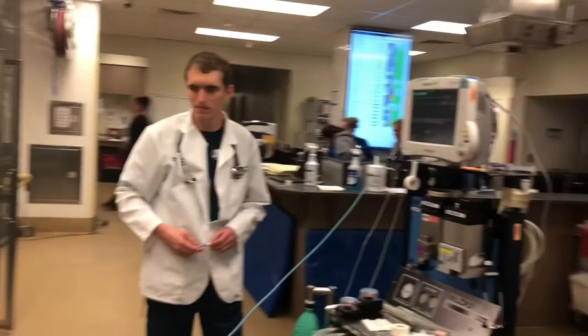The next tube is going to be a bear hugger. The bear hugger works by that white tube attaching to a blanket. You always want to have a bear hugger blanket with the bear hugger itself, because if you just have the warm air blowing on your patient, it can cause a burn.